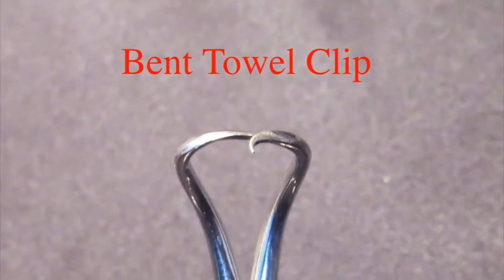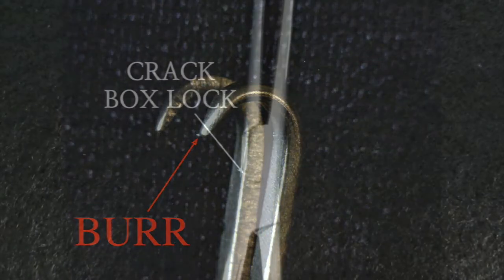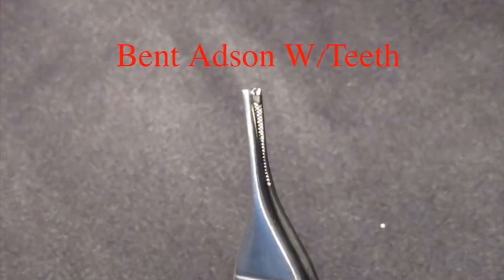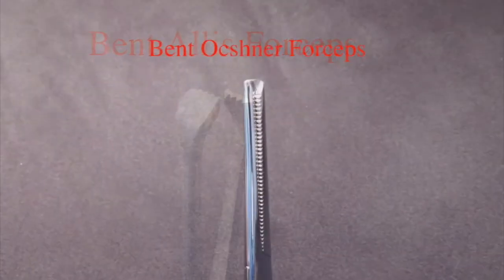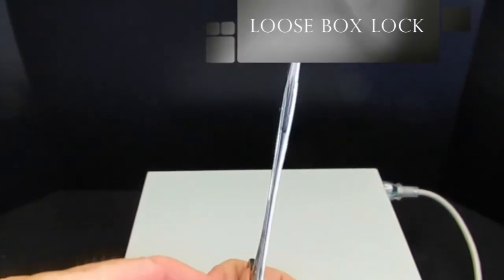This program will teach you how to recognize malfunctioning surgical instruments. It identifies their component parts and demonstrates the techniques used to evaluate instruments for proper operation. Although these procedures are simple, the techniques are specific and attention to detail is important.